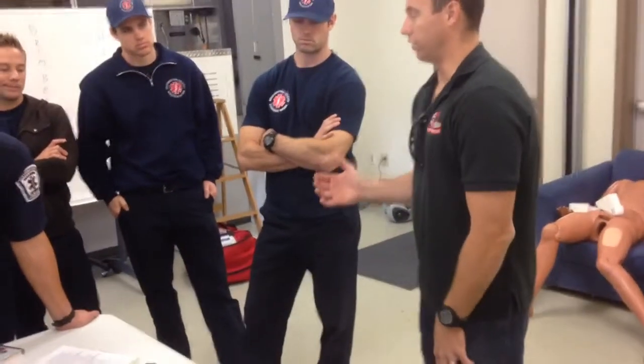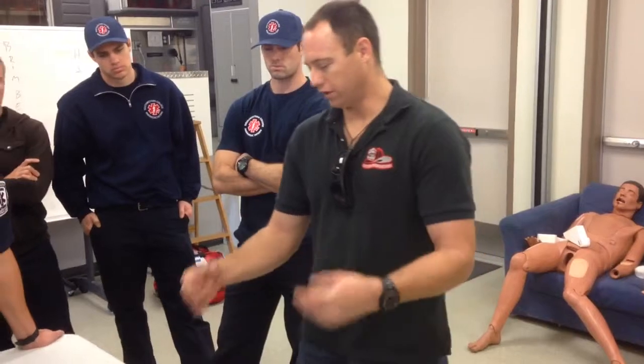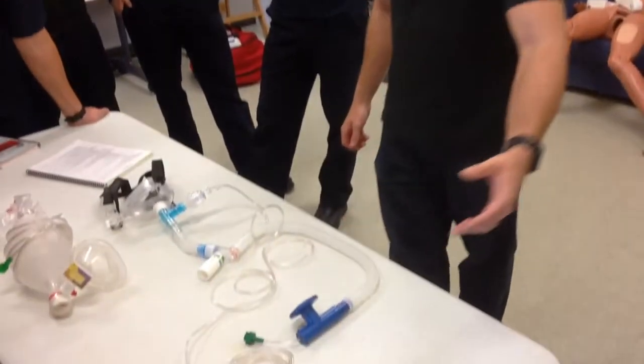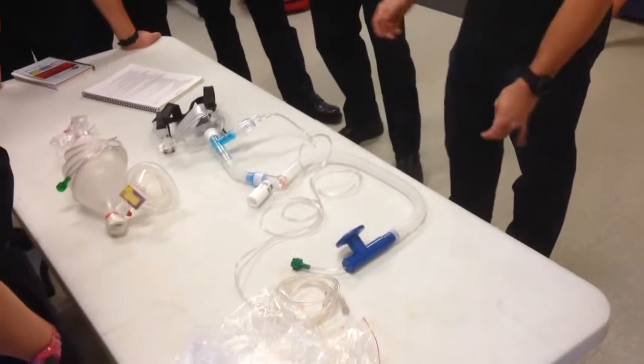So my recommendation for you, and I spent a lot of time in the ambulance checking this out: when you set this up on a ride-along or at the beginning of your internship, hook all this up, throw some saline in there, and change your airflows. Turn this one down to maybe 20, dial it down to 20, 15, and then turn this one up to 12, 15 liters per minute.